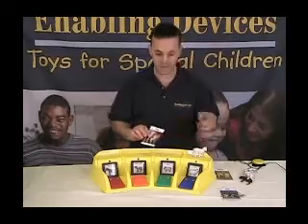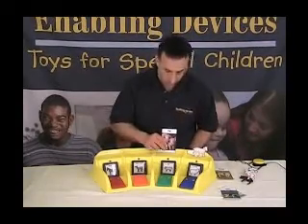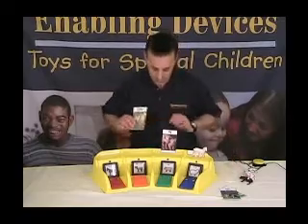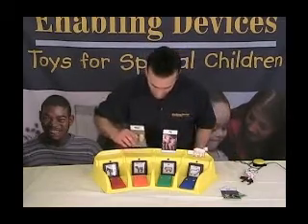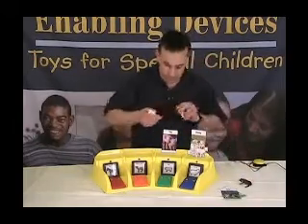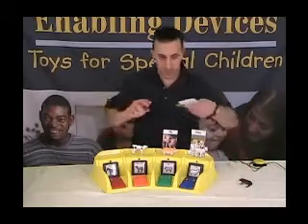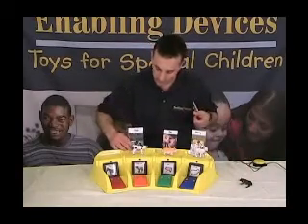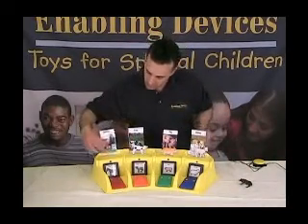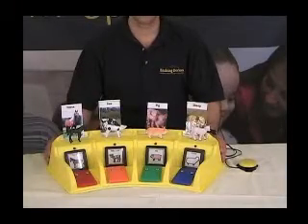I just rotated through the levels to bring the machine up to level 1, which is the level we're going to work on. With our icon holders, you have two locations for the icons. There are basically just two modes or two ways you can use the scanning function on this machine.